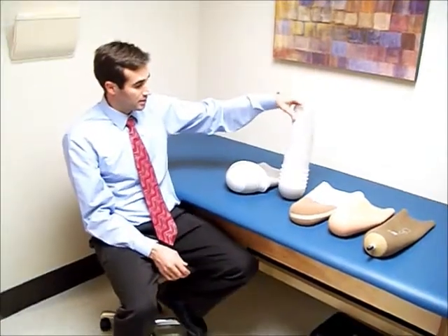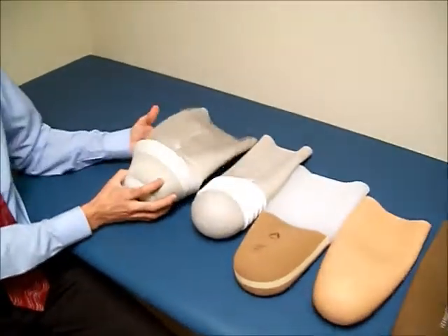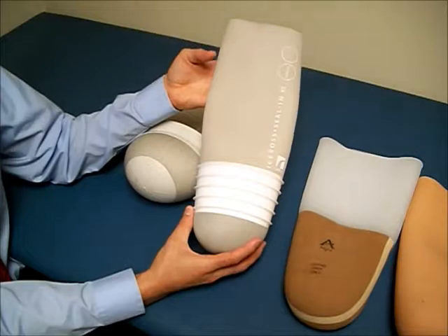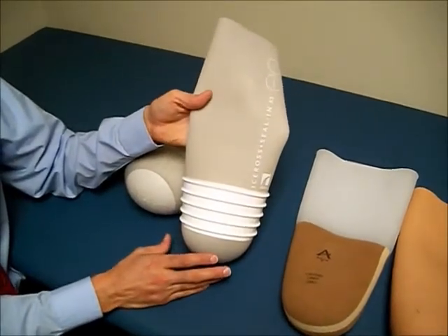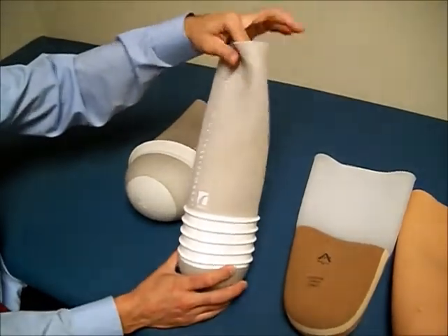These are some unique designs that form an airtight seal with the prosthetic socket. If you're using a suction style prosthesis, you can use this and get rid of the suspension sleeve that covers the knee. They're not for everybody — you have to have a long enough limb and the limb has to be cylindrical.